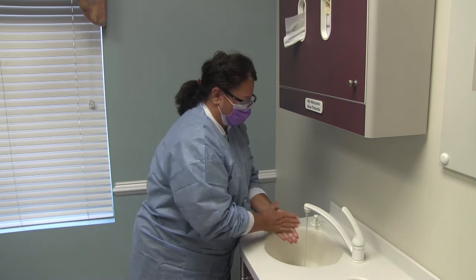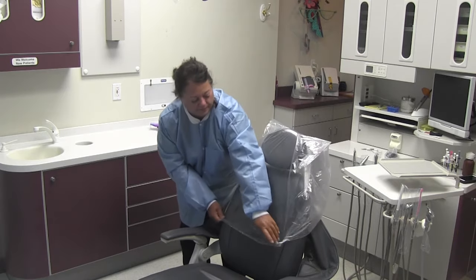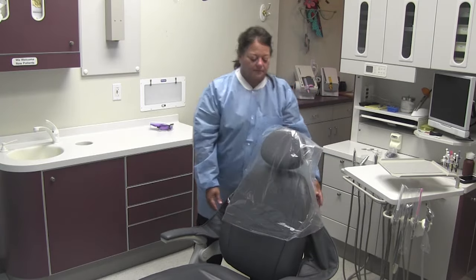When placing surface barriers, always wash and dry your hands first. Place each barrier carefully and ensure it is securely in place.